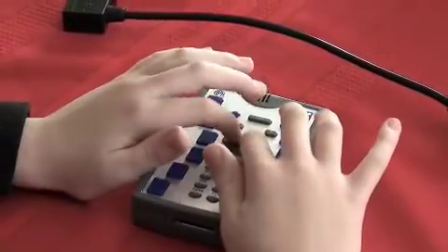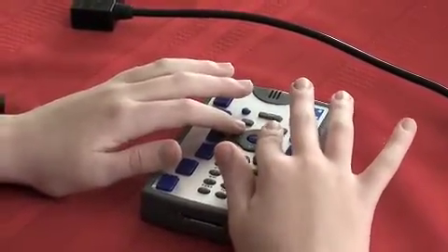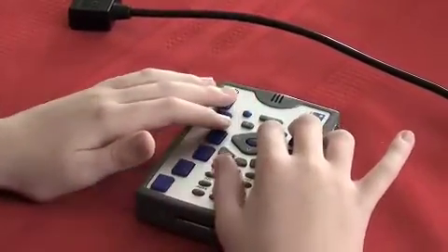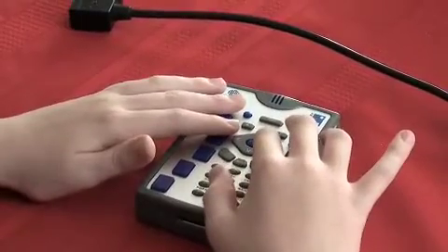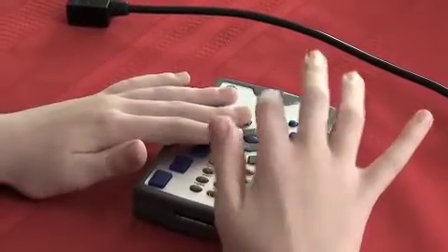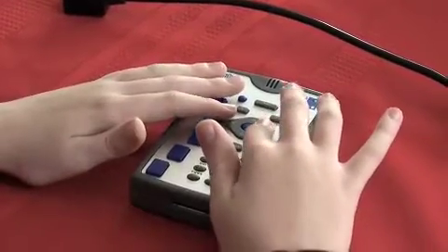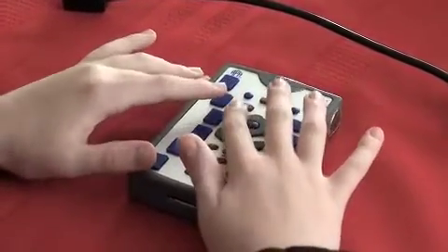Then the key to the right of Select is the right arrow. And if you press the right arrow, it'll open a submenu, move to the next character in a document, and some other things. I was on the internet menu and I pressed right arrow and it opens the internet menu and there's a web browser. It's the first item.